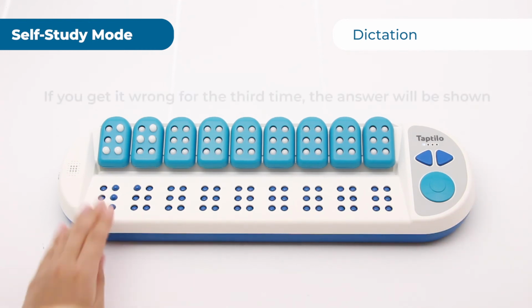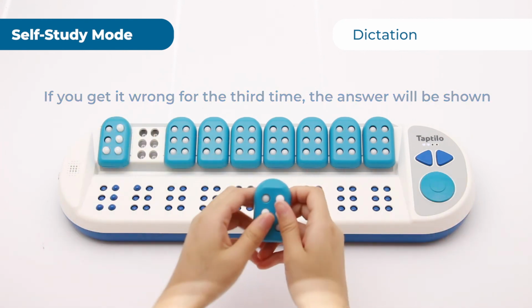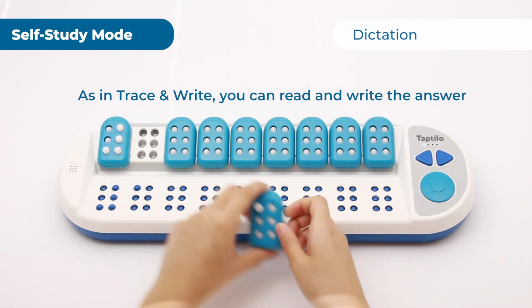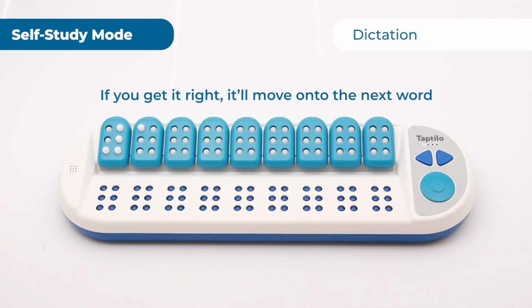If you get it wrong the 3rd time, the answer will be shown on the braille display. Then, as in trace and write, you can check the braille and write the correct answer. If you get it right, it'll move on to the next word.